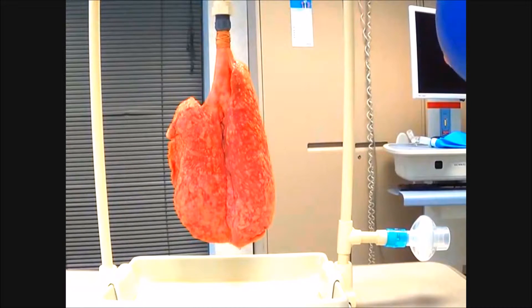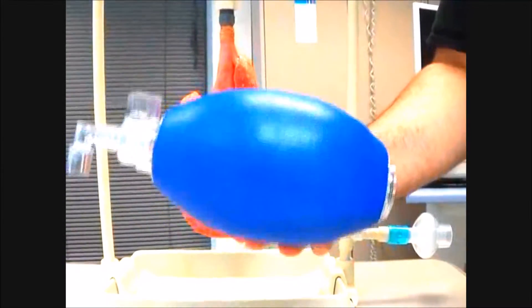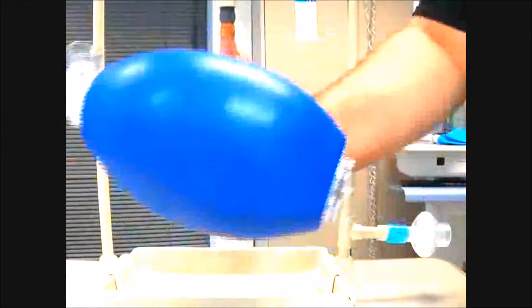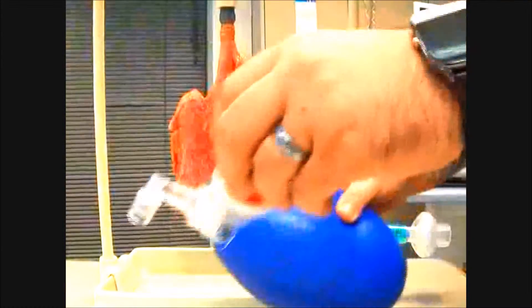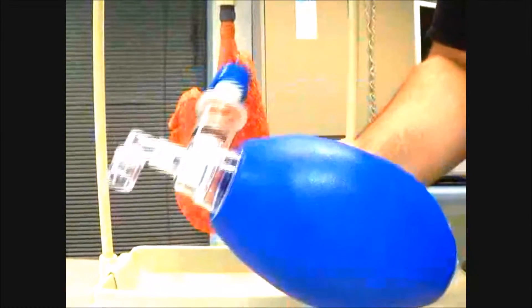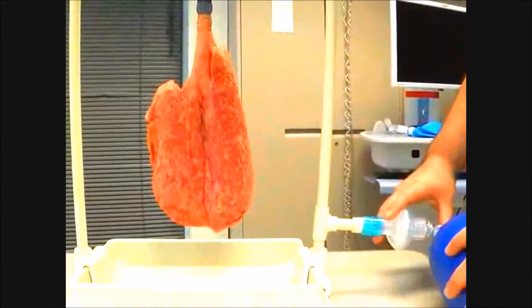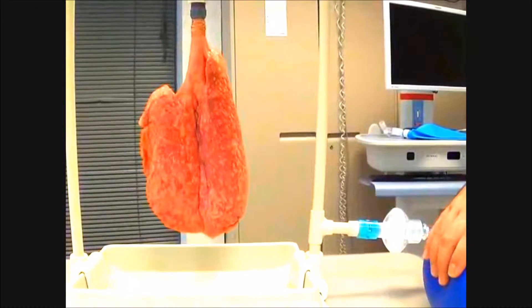What we're going to demonstrate here is the ventilation of lungs with a standard manual resuscitating self-inflating bag, taking the corrugated tubing off the rear — which is usually the oxygen reservoir — just to simplify the size of it. This is where your PEEP valve would go, right here. I'm going to show you what it looks like when you bag without a PEEP valve, then with one. I'm going to plug into my lungs and give approximately half the bag, so roughly about 500 cc breaths.